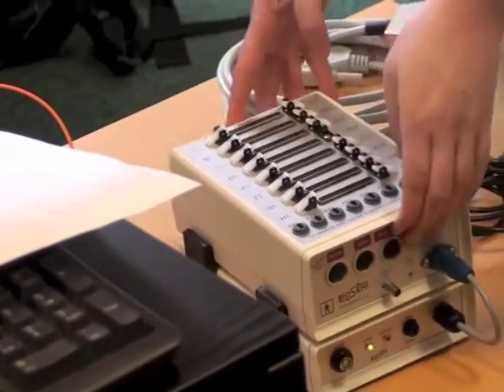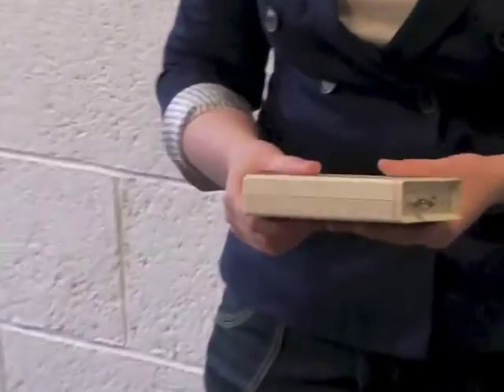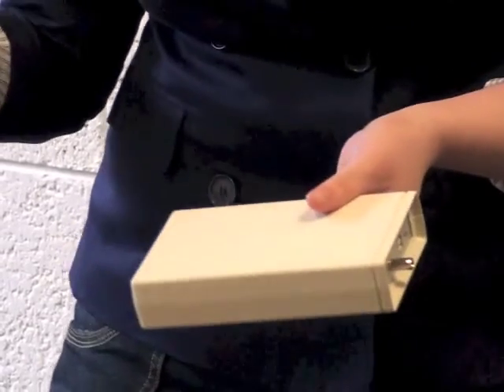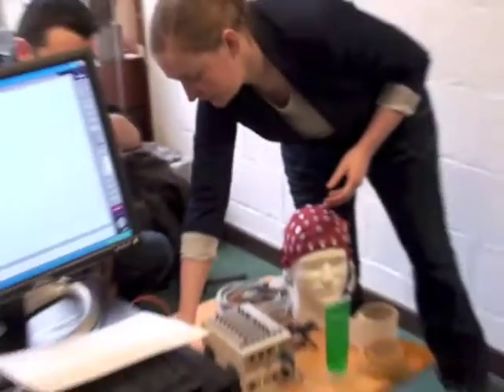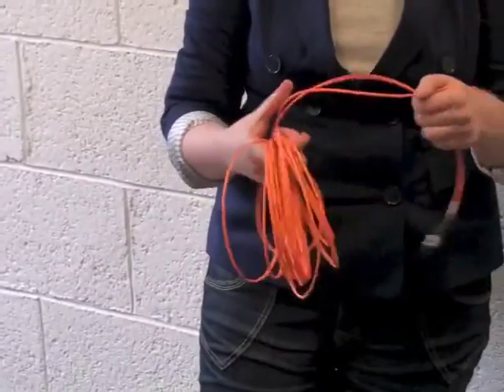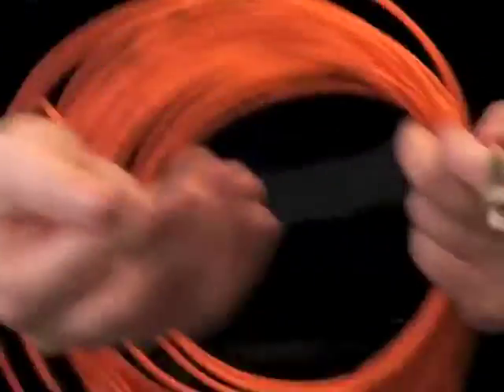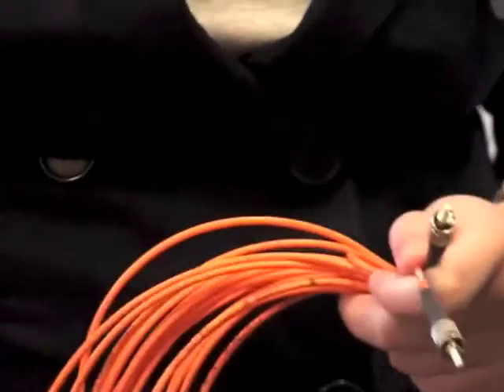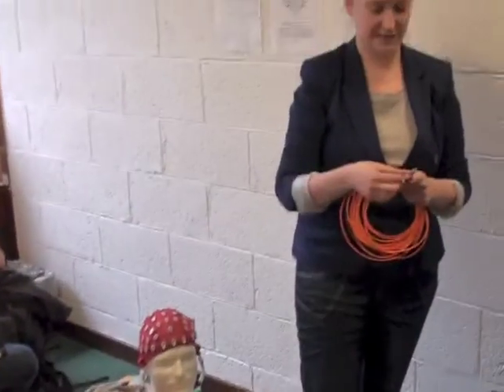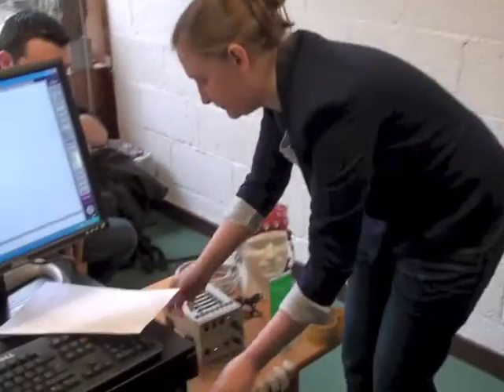Okay, this is the other important box. This box is going to be what communicates between the two computers. So remember I said the two need to talk to each other in terms of timing. This is that box. So this long orange cable connects these two. It's very delicate. The ends of the cables are protected by these black caps when you're not using them. I always leave them in the bottom of my computer bag so I don't lose them, because they're really easy to lose.